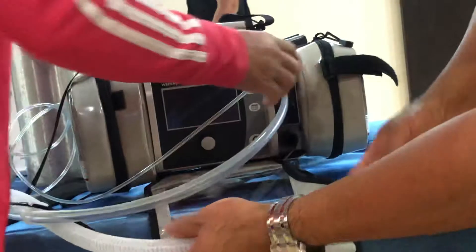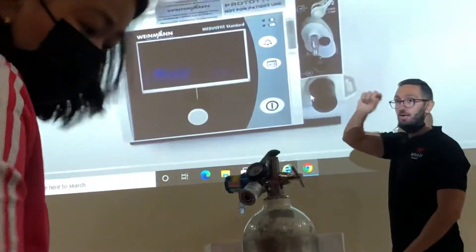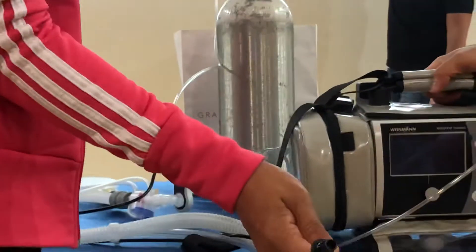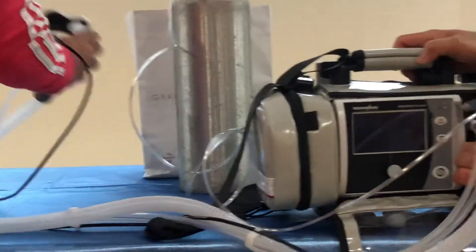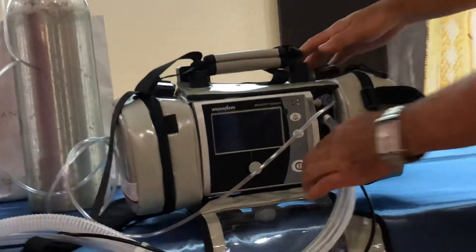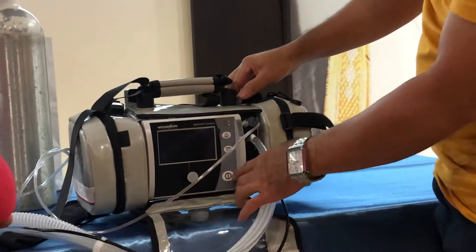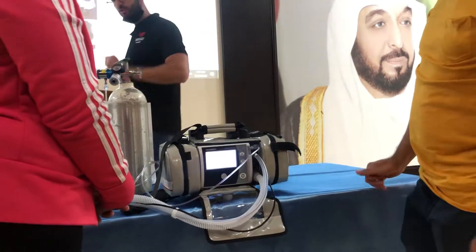When you connect the patient circuit, always use the transparent lines — top and bottom. There is a third one, but it's not activated. It will be activated in the future when new options are added to the device. There will be some really nice features in the future, where you can synchronize the ventilator with your CPR machine. But this is for next year.